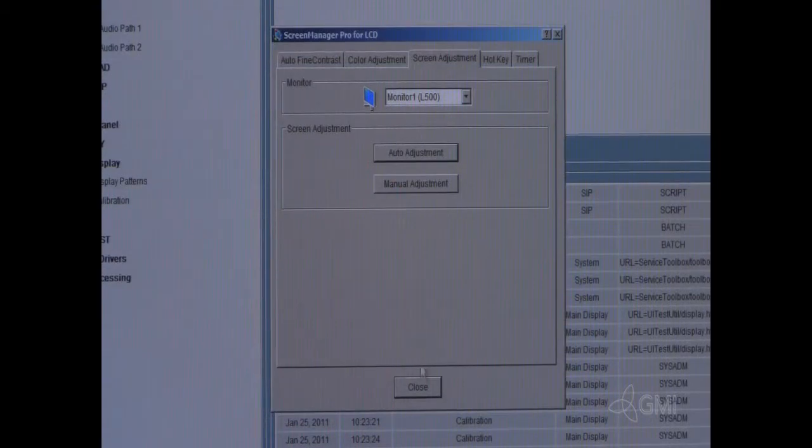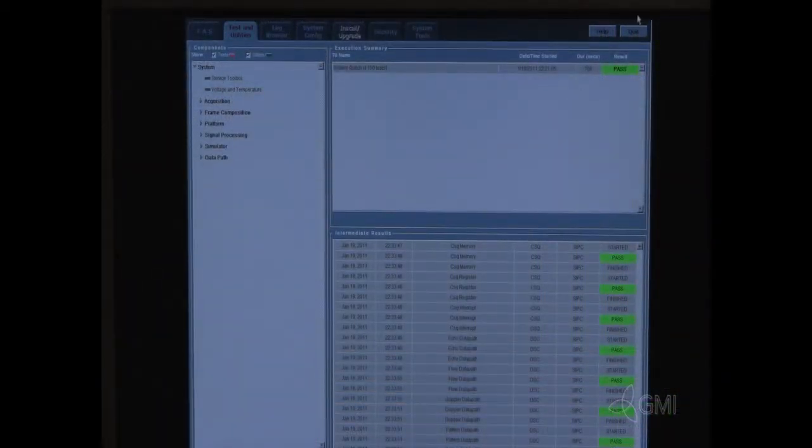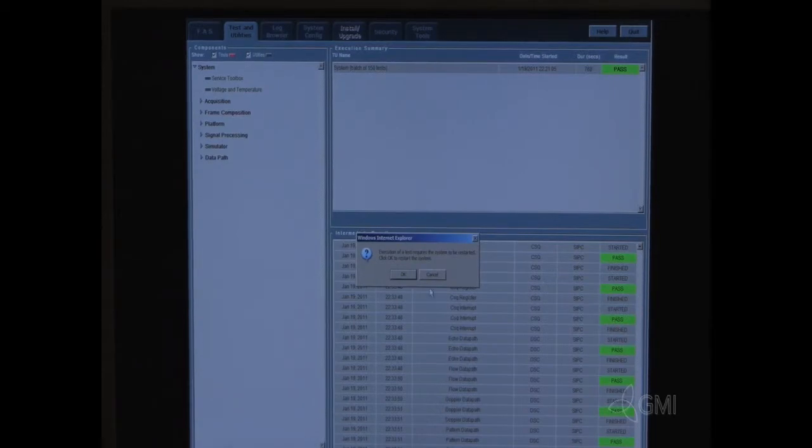Once the calibration has completed, select close. Once the calibration has passed, select quit, then select OK to close.